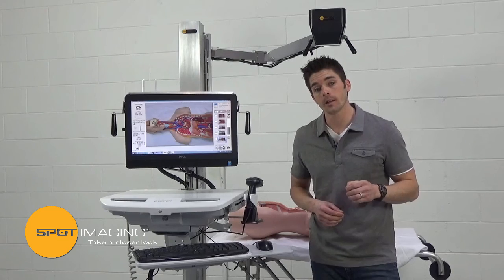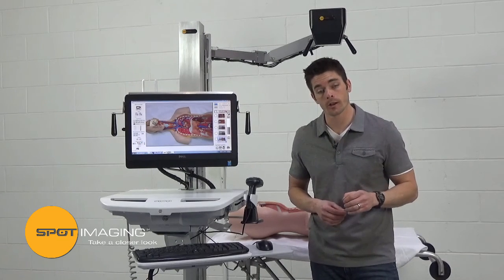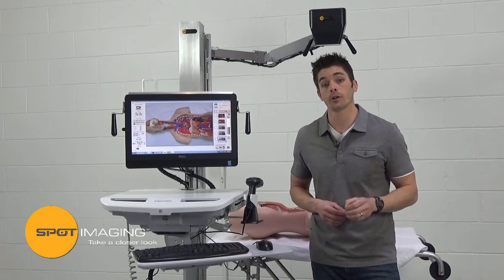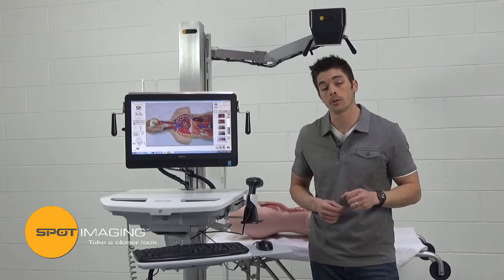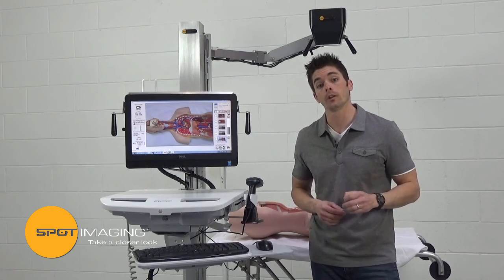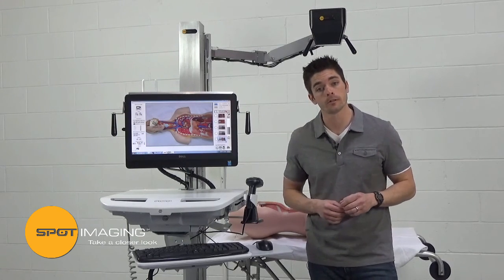The versatility, ease of use, and high resolution image quality make it easier than ever to demonstrate your professionalism to the world. Contact a Spot representative today and learn more about what the PathMobile can offer.